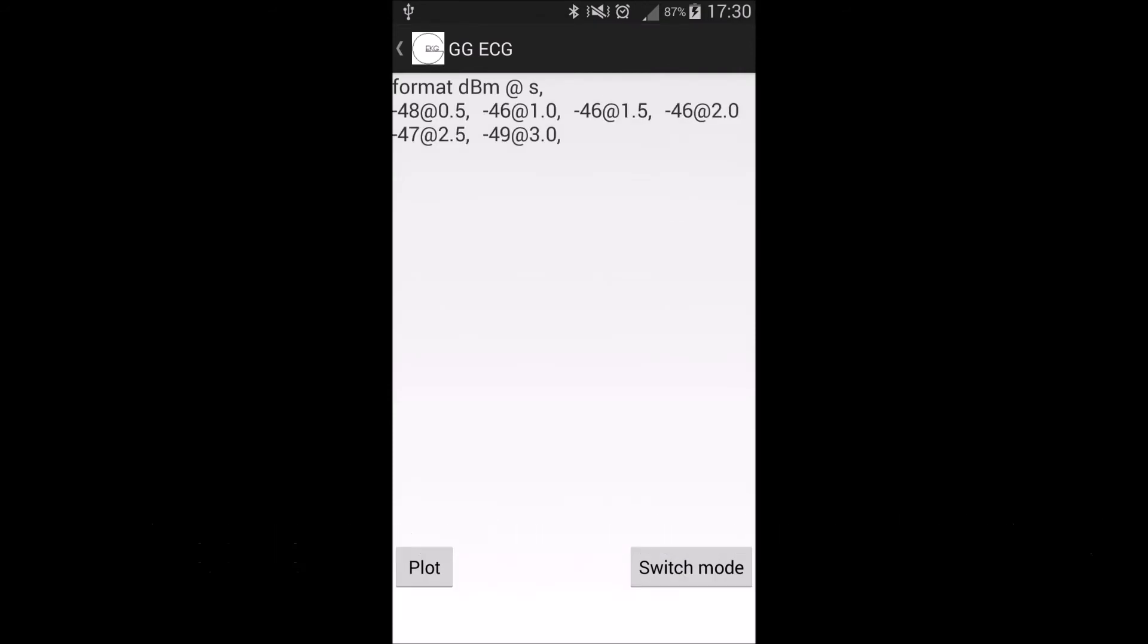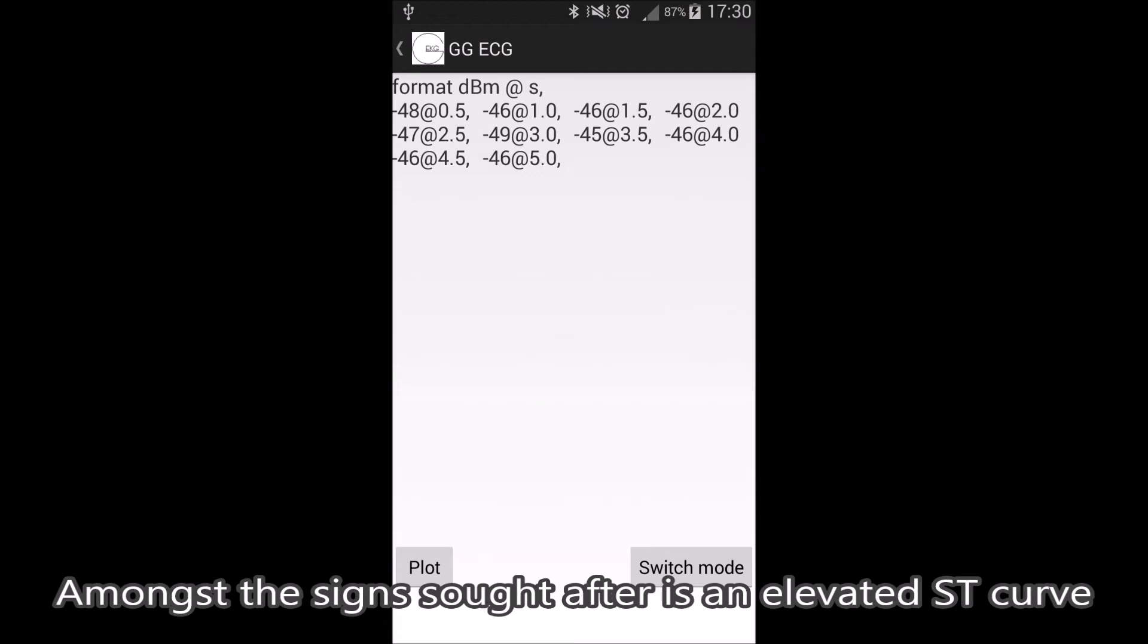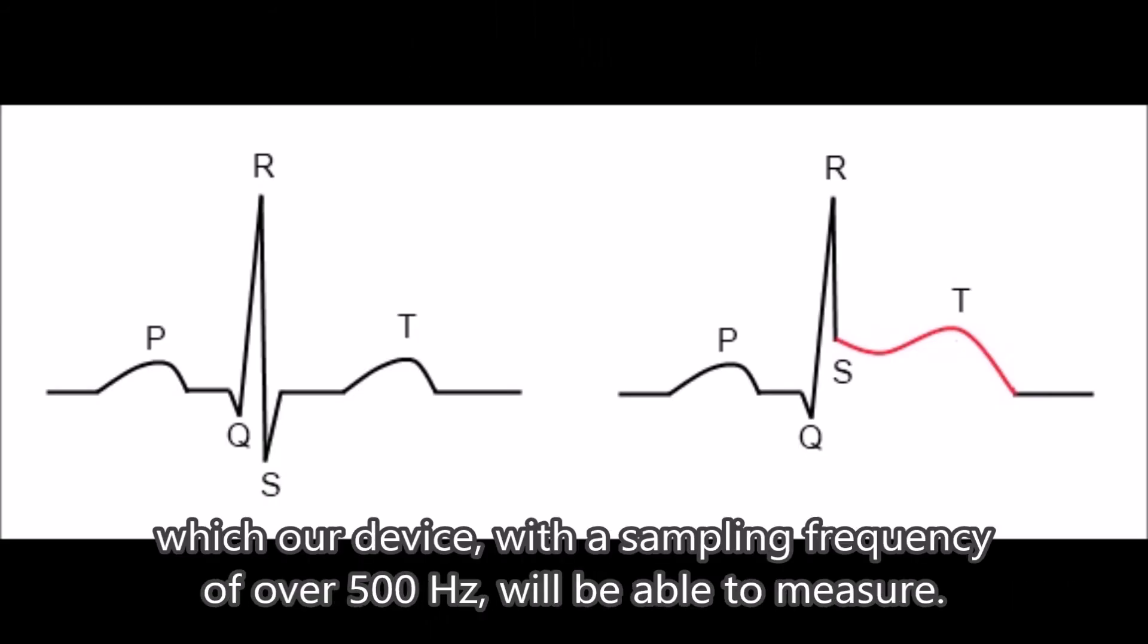With the press of a button, the data displayed is instead the signal strength for demonstration purposes. Amongst the signs sought after is an elevated ST curve, which our device, with a sampling frequency of over 500 Hz, will be able to measure.